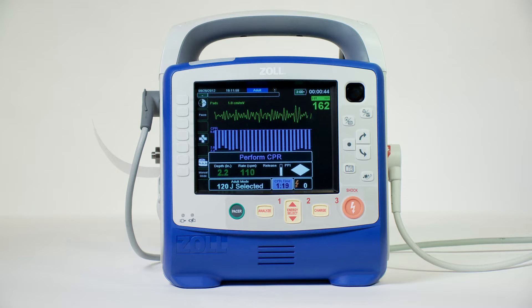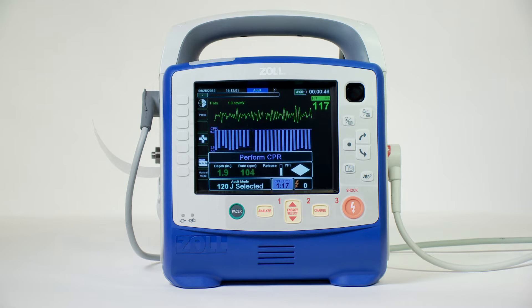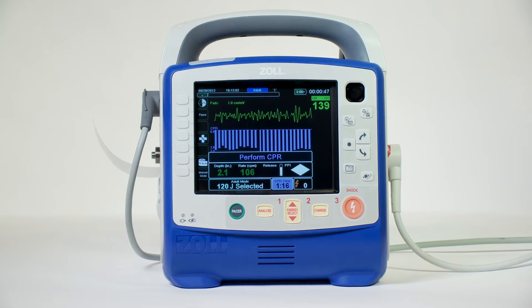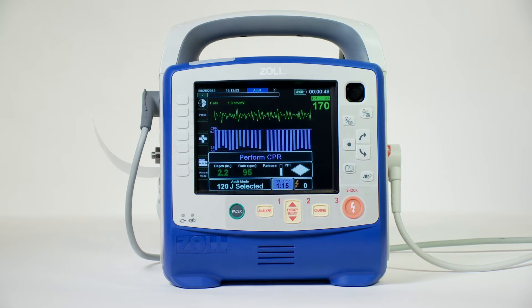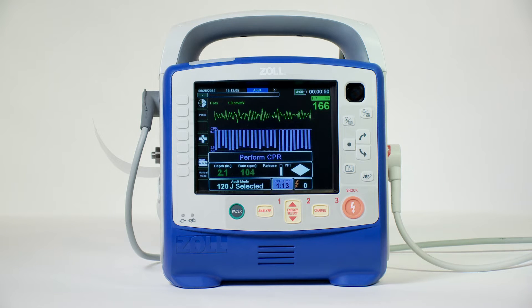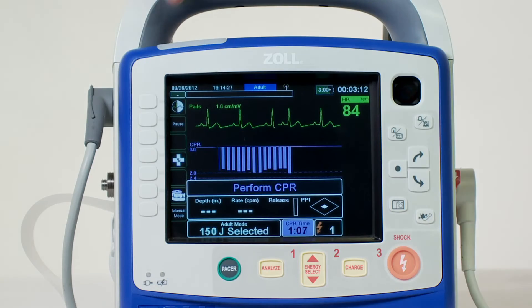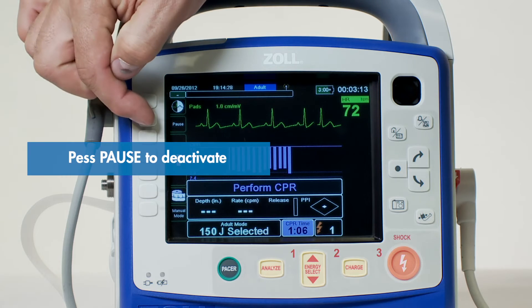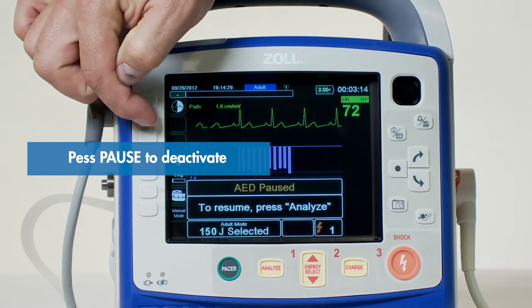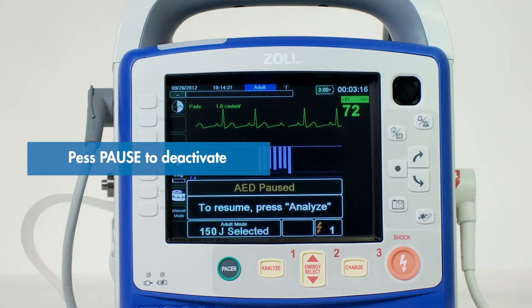This feedback cycle is repeated as long as the defibrillation electrodes are attached to the patient and CPR protocol is active. To deactivate CPR protocol, simply press the quick access key labeled pause.